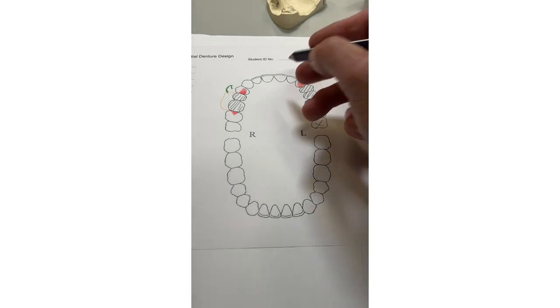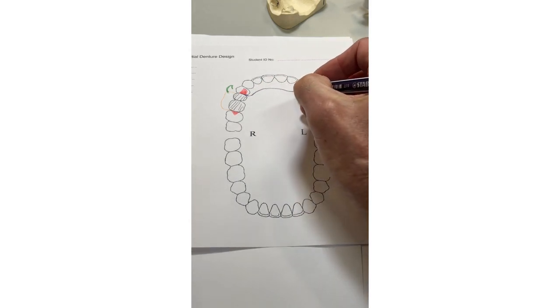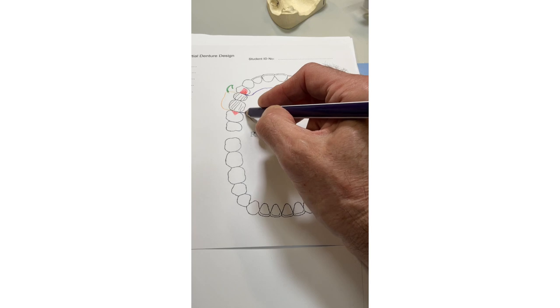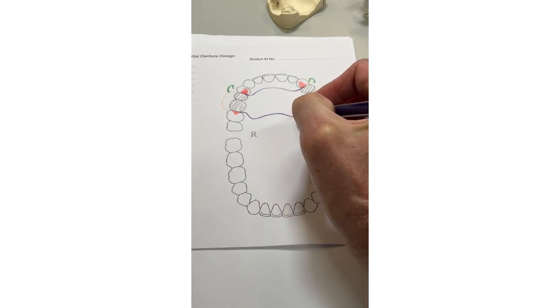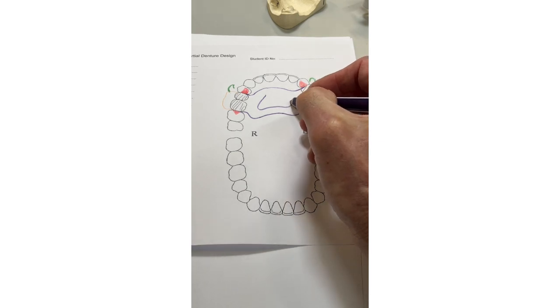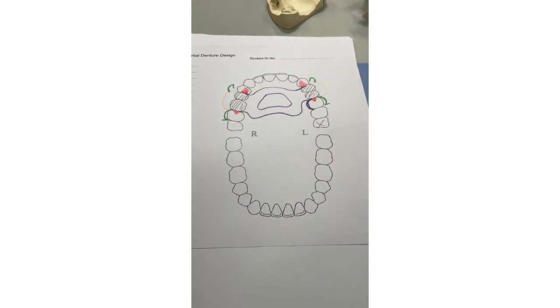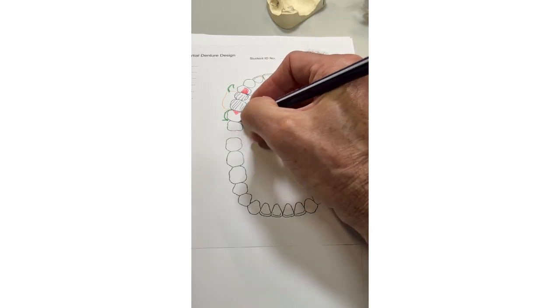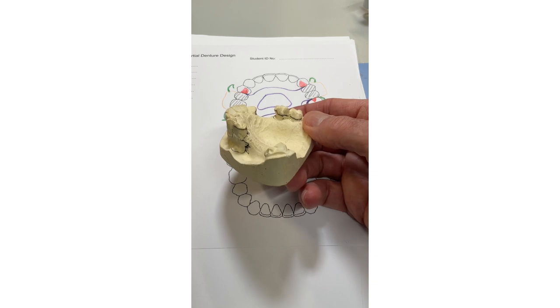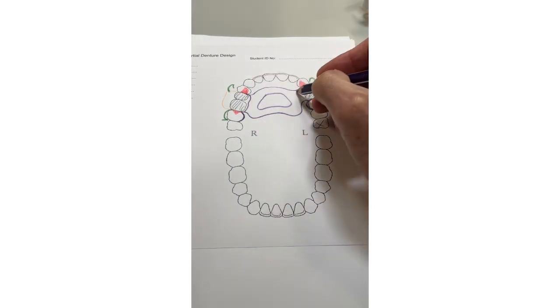All we've got to do now is join it up. Since it's gingivally free, you can bring the denture base down here, spread some load across the palate, and come back up. Everybody seems to like making ring connectors. Bring the denture base away from the gingival tissues. If you want to do a ring connector here you can, because it's not a free-end saddle. If you're going to clasp this upper molar, the clasp is less visible. You could do arm reciprocation on the premolar and molar — there's plenty of height.